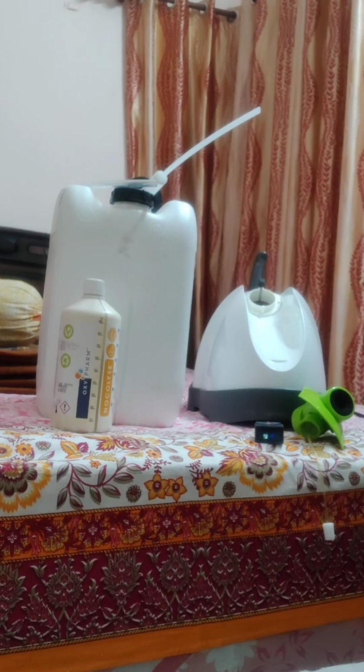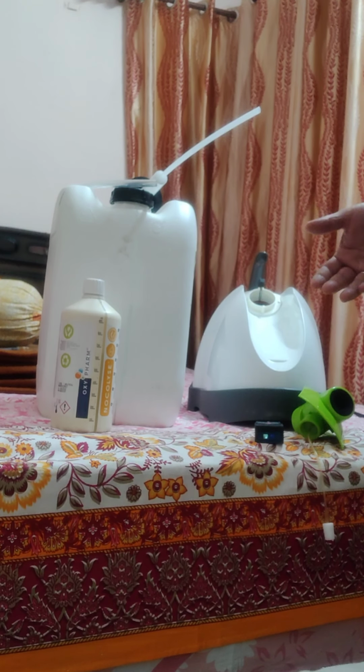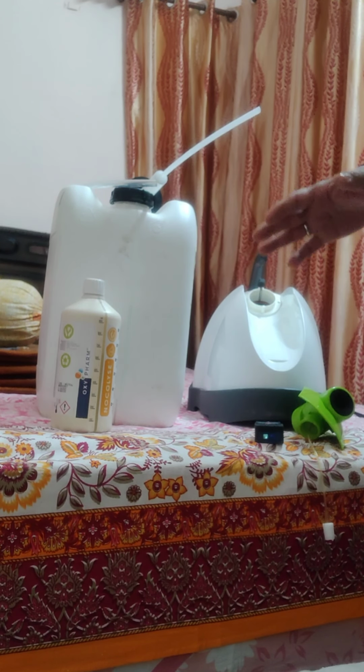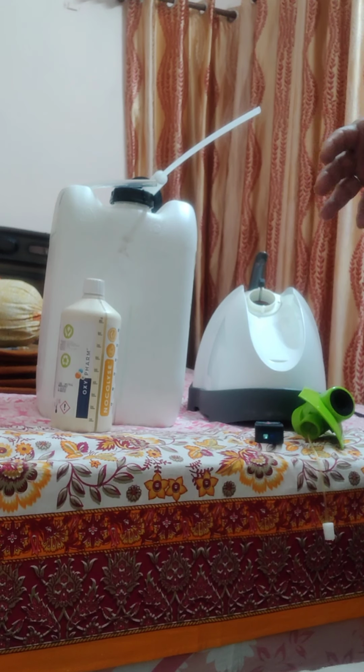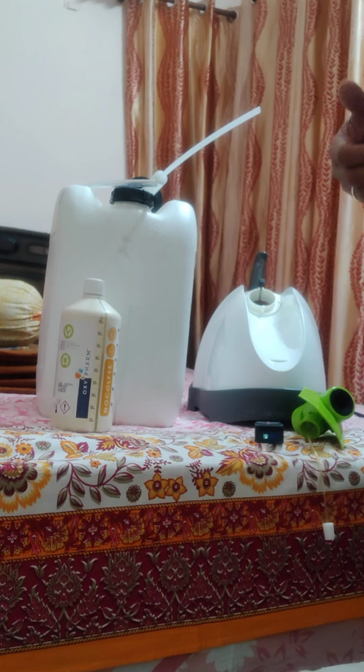Gentlemen, this is the total Nocosystem that we have been selling on behalf of Oxypharm, which is a company from France. And I, on behalf of Namo Drugs and Devices, who are dealing with the sales and services of this particular system, Nocosystem, would like to explain to you the usage, how to use it, in your day-to-day routine.